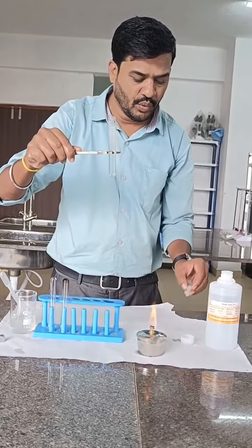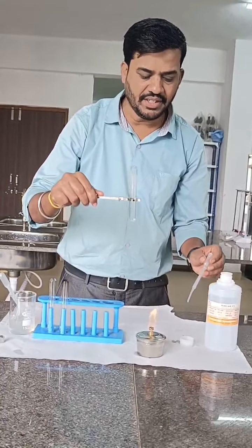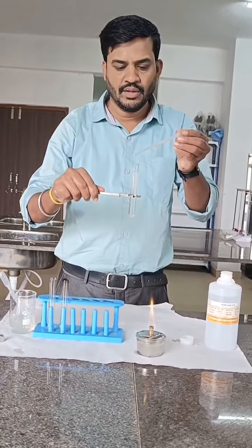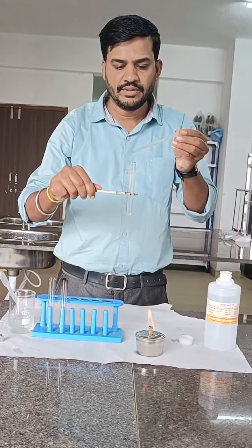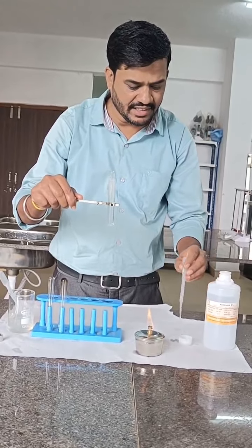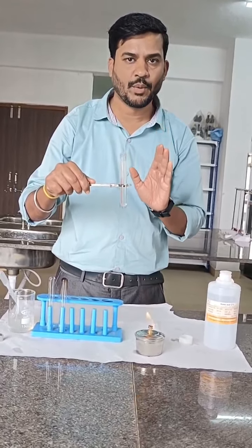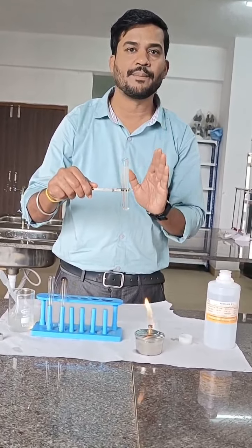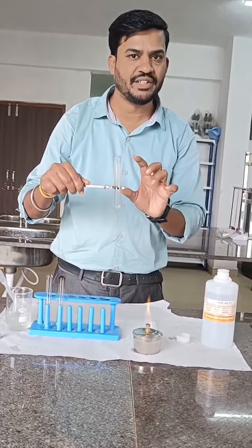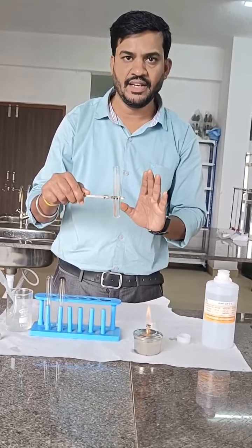To confirm that, we need to add 3 to 4 drops of 3% glacial acetic acid. Now I am adding 3 to 4 drops: 1, 2, 3, 4. After adding glacial acetic acid, if the coagulum remains, that indicates protein is present in the urine. If the coagulum disappears after adding glacial acetic acid, the protein is absent in the urine.